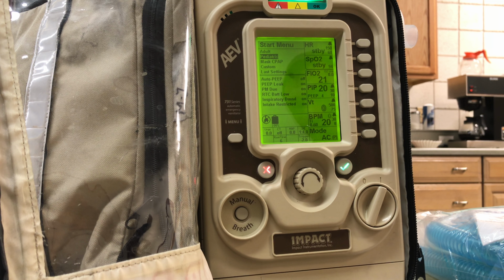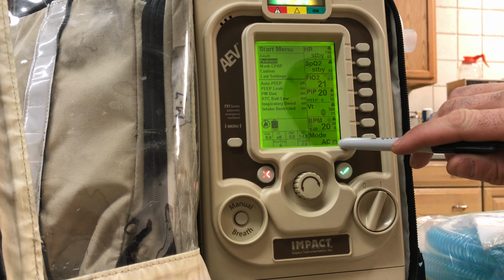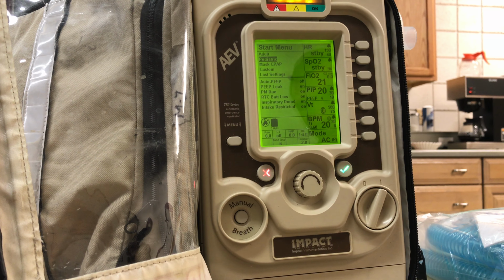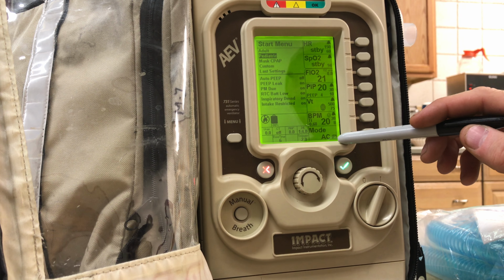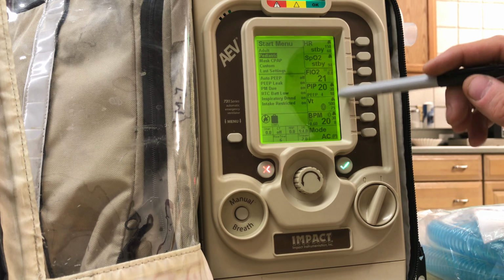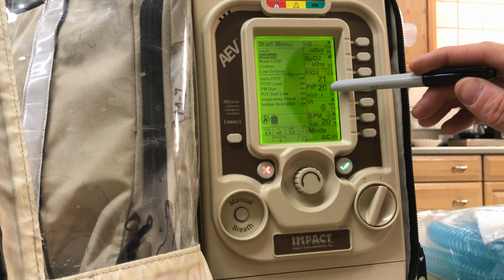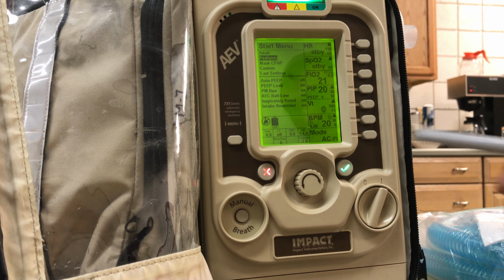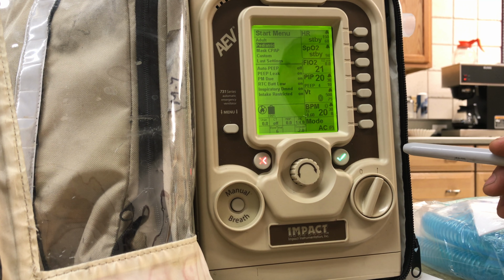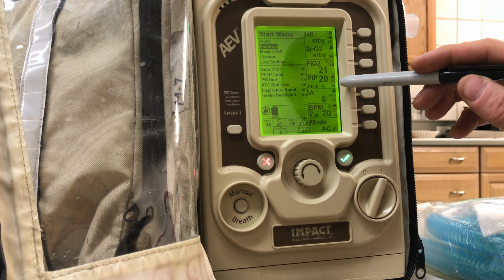Now the main thing that changes when you change it to pediatric is you notice that it switches from AC mode, AC volume, to AC pressure. If you're not familiar with that, instead of AC volume, where the vent delivers whatever tidal volume I set, AC pressure sets your PIP, and then it pushes air in until you hit that number. The problem we run into when we select that is that if you're doing chest compressions, your PIP due to the compressions is going to be extremely high.